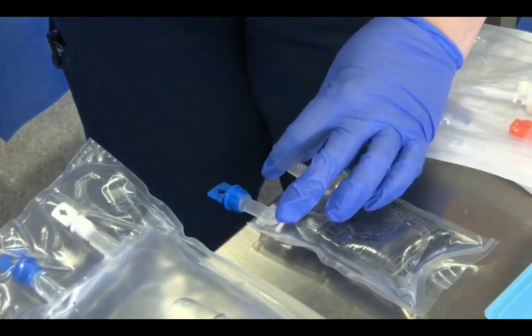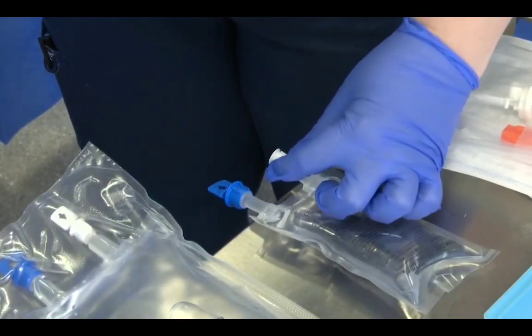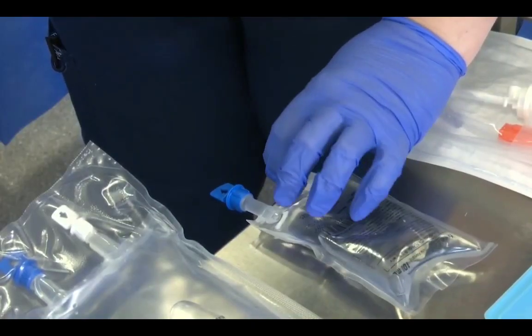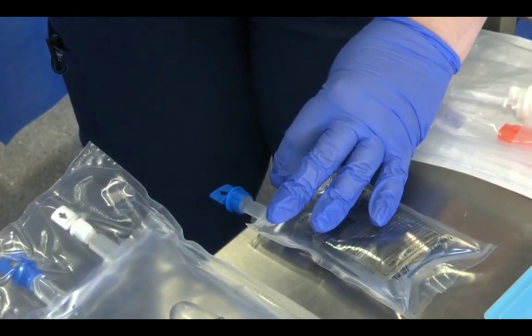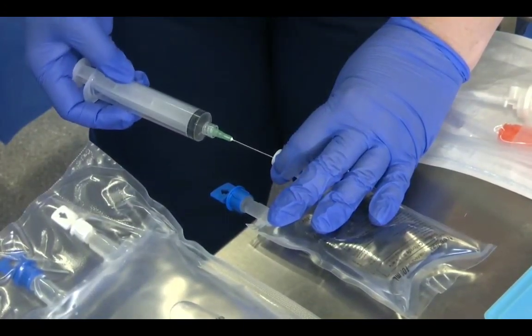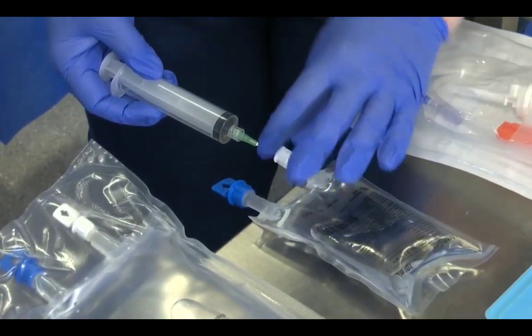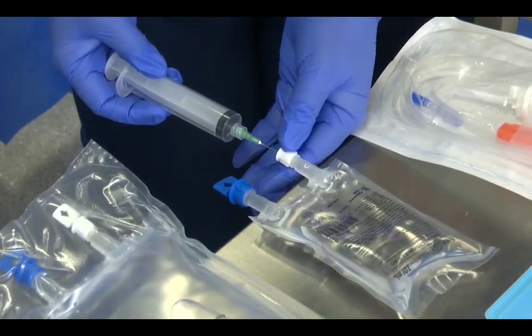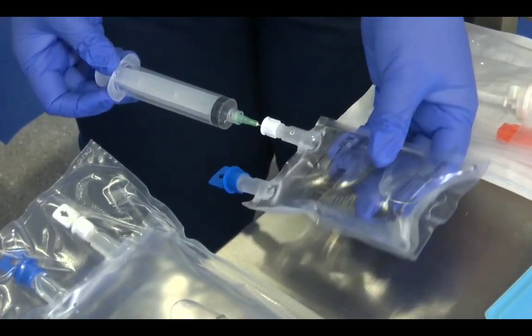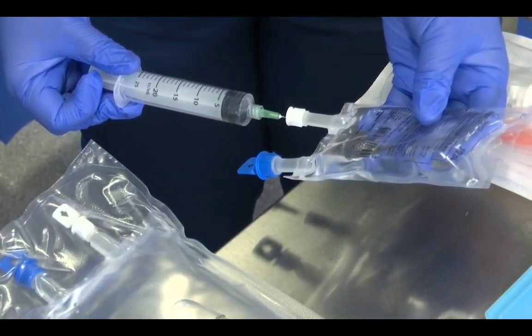So now that I'm ready to remove the fluid, after I've removed the cap, I'm going to hold the white cuff. This is a hard plastic and it stops the risk of needle sticks. Not entirely, but it helps. I'm going to place the needle in straight, no angles, just straight in through the injection port. And once I enter just a little bit, there's a membrane that I have to push through. Once I've pushed through, I remove 20 mils of fluid because I'm adding 20 mils in.